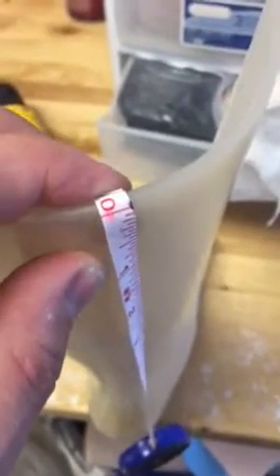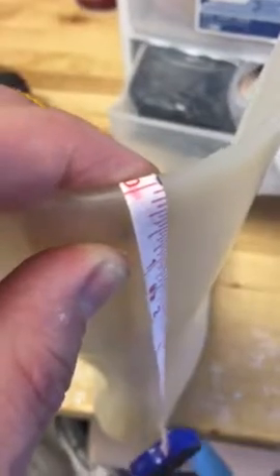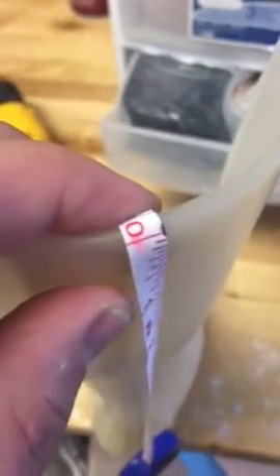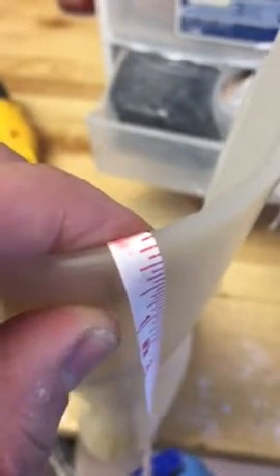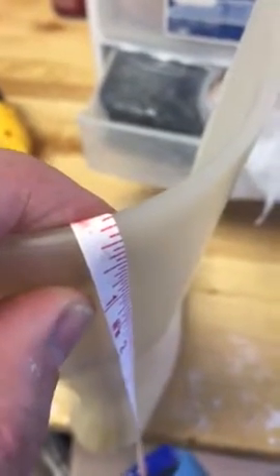In this short video, we just want to talk about the thickness of most AFO braces. If I just wanted to show you the zero here to say that's the starting point — if you look at it, in most adult AFOs you can count those small little lines: one, two, three sixteenths of an inch.